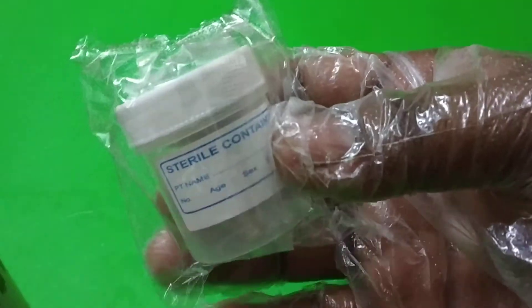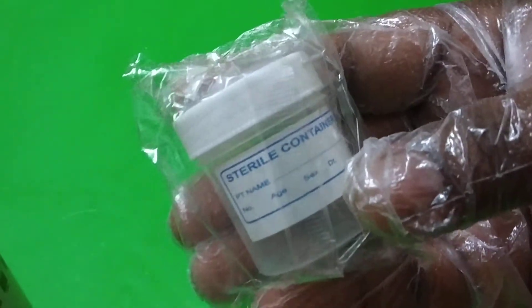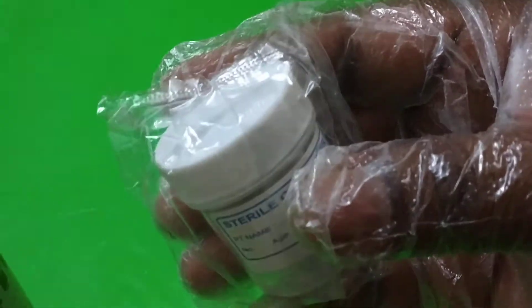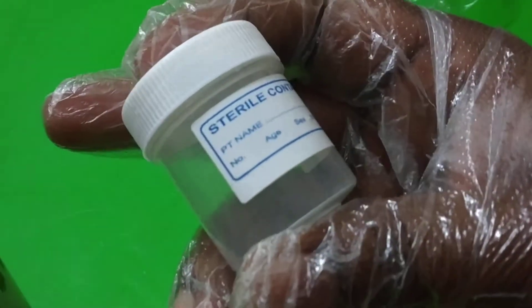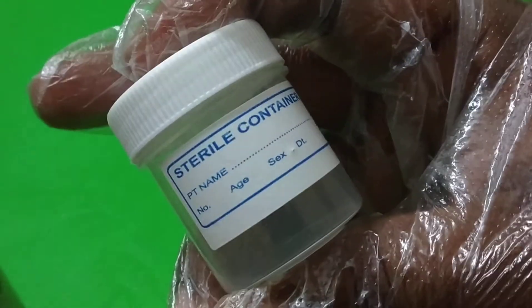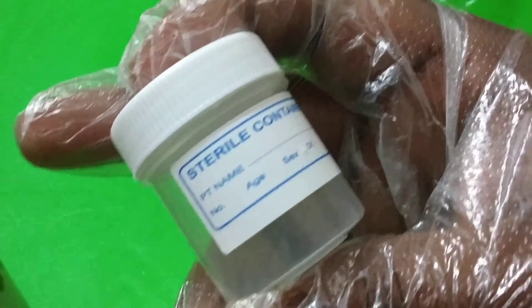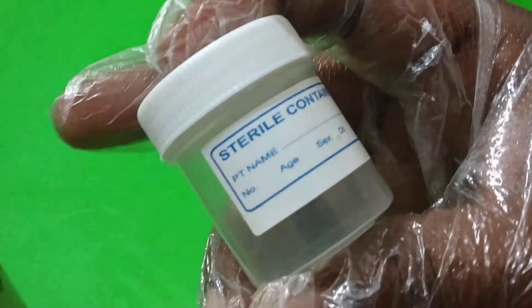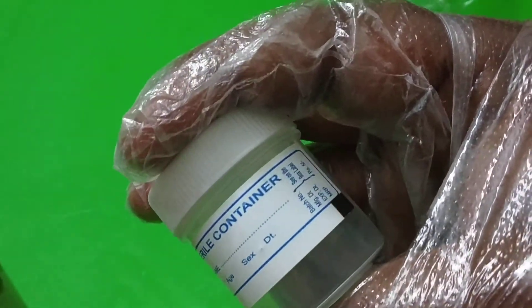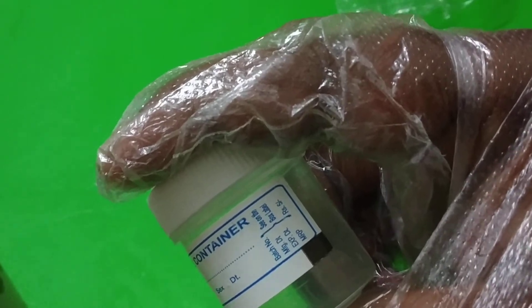This is the sterile sample container. When we are collecting a sample from the patient, we give this type of bottle. On the bottle it is written: patient name, number, age, sex, and date. We have to write the patient name, the sample number being tested in the laboratory — whether it is the fourth, fifth, or sixth sample — and also the age of the patient and whether the patient is male or female.